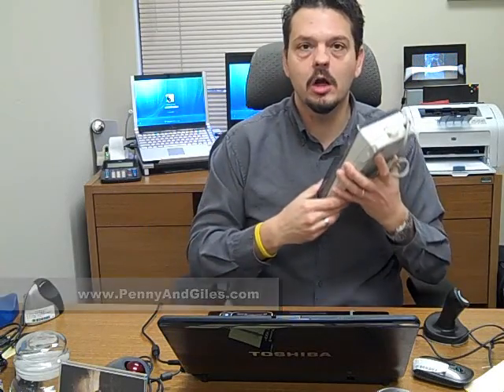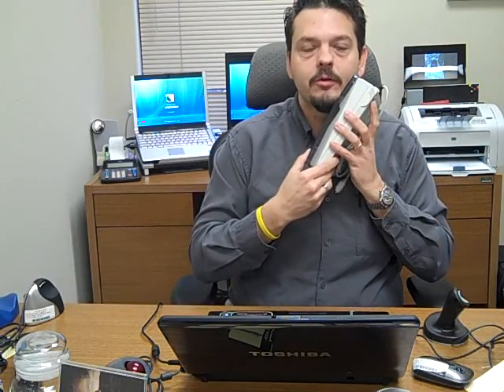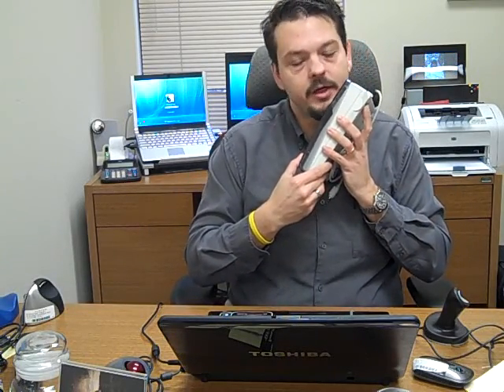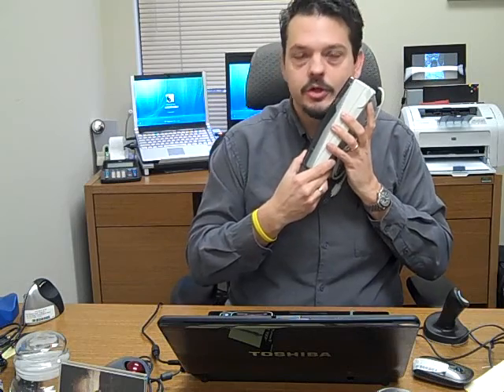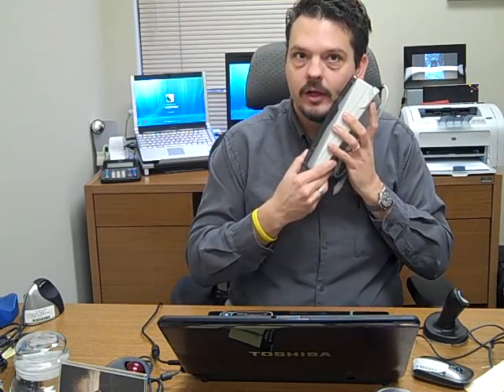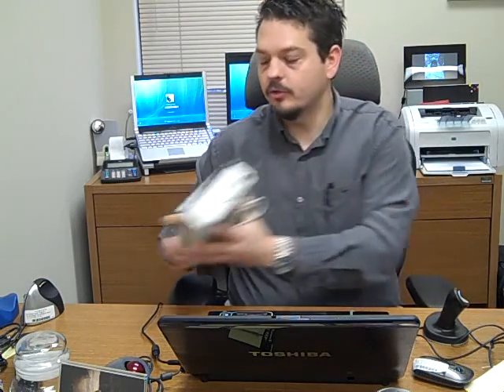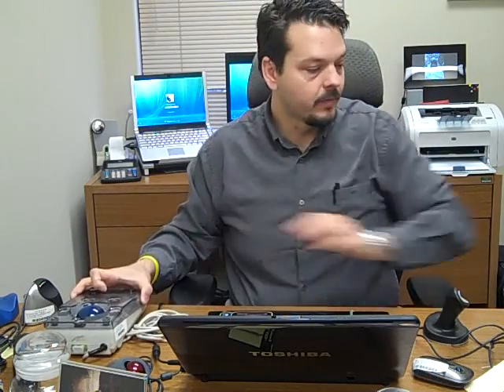We've also taken this one and mounted it on an arm so that somebody with a spinal cord injury can move their chin around like so and control the computer.